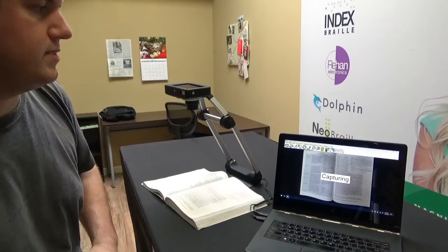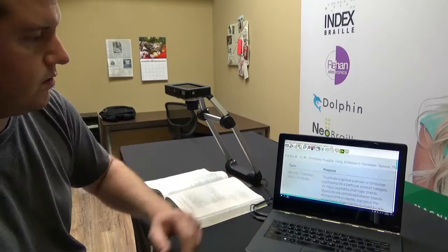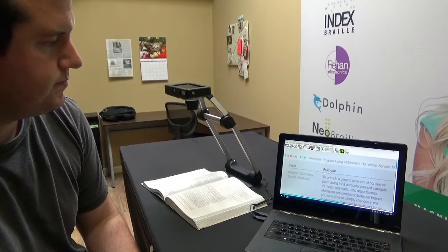Capturing. So it captures that. It's going to take a moment. It's going to recognize it and then begin reading this to us as well. Now if you watch on screen here you can also see the page straightening happen. There you go. It's straightened out.